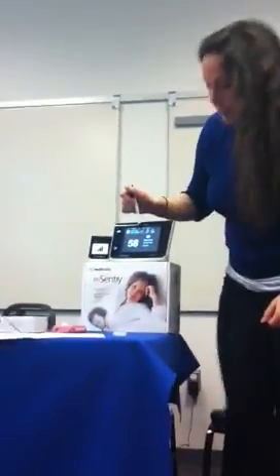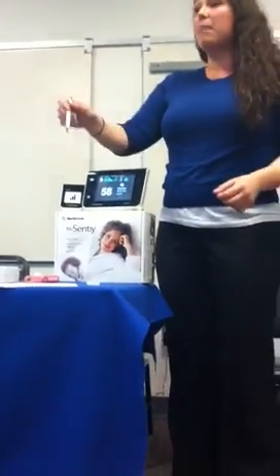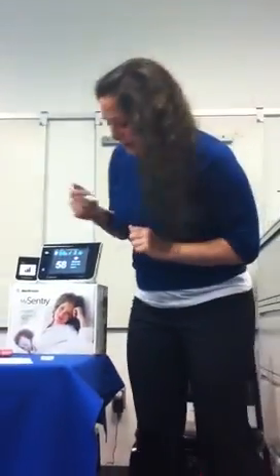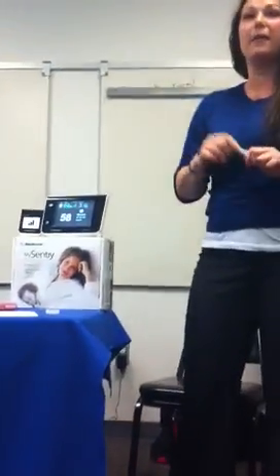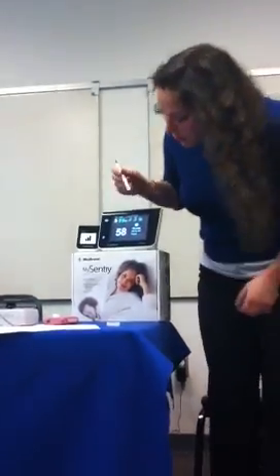Additionally here, this is also the signal. So this is showing the signal of the pump and how it's transmitting to the mySentry, and so that's to the entire system. Is everyone good so far? Mm-hmm. Okay, definitely. So as you can see, this is showing a 58 right now, and it's showing a double down arrow. So it's showing that this person is dropping pretty quickly, and we should get an alarm here pretty soon. So now we'll go over to the sensor information that it's going to show.